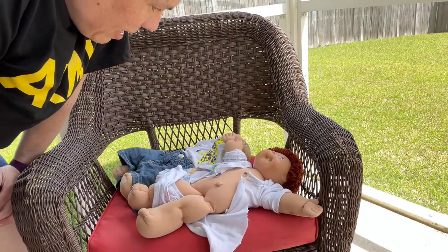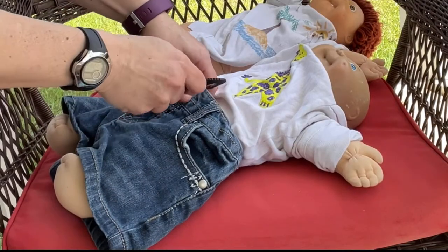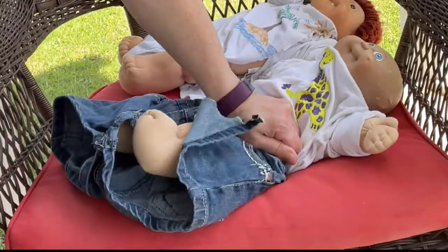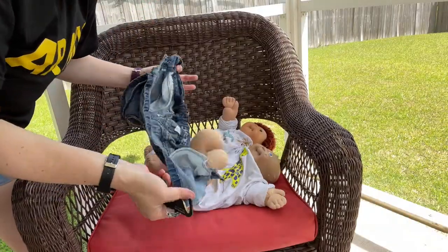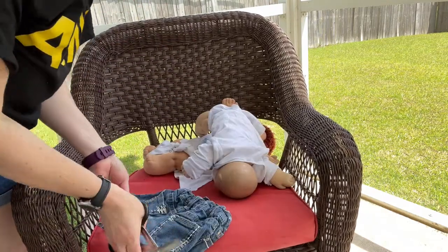As you can see, that was a lot more efficient. Now see how the denim holds up — that easy. Let's try the trauma shears.